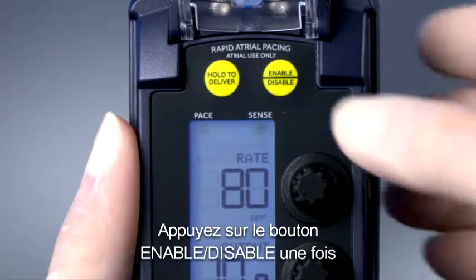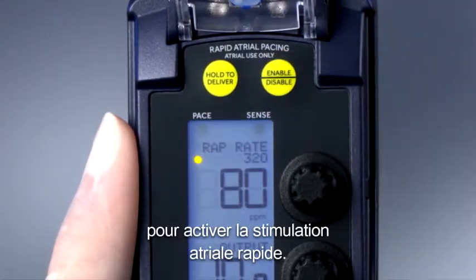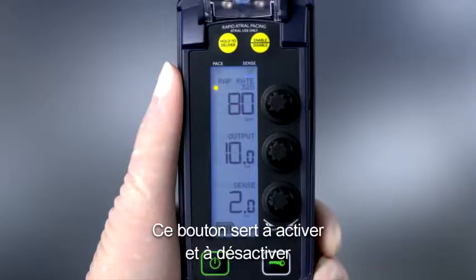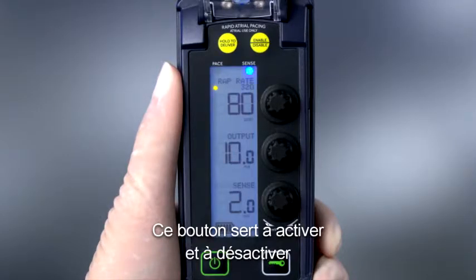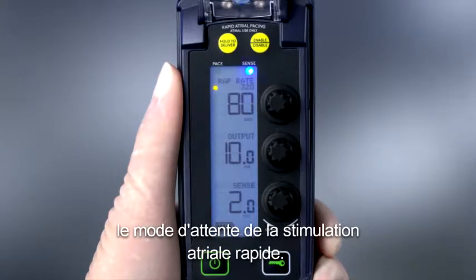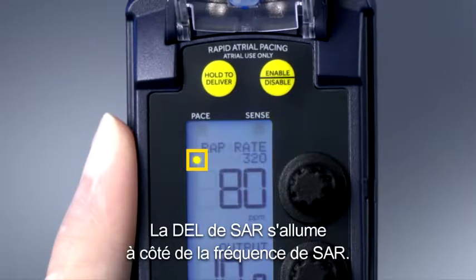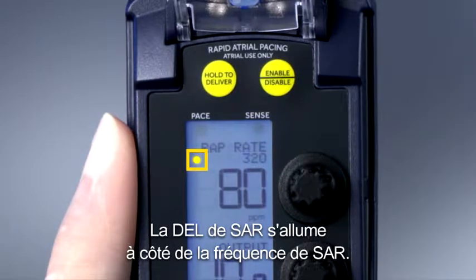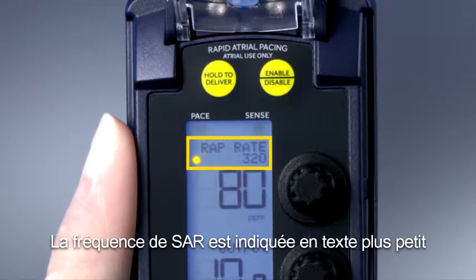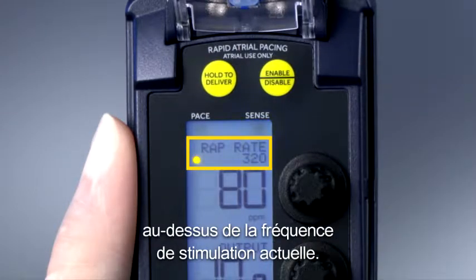Press the Enable/Disable button once to enable rapid atrial pacing. This button is used to enter and exit rapid atrial pacing standby mode. The RAP LED illuminates next to the RAP rate, which is displayed in smaller text above the current pacing rate.